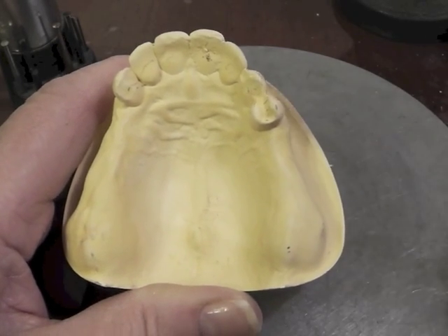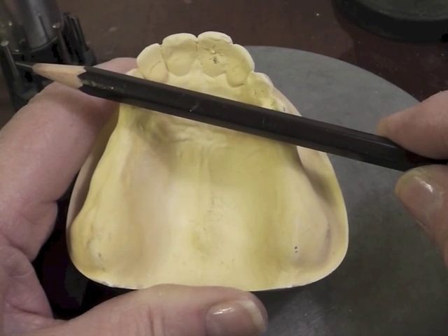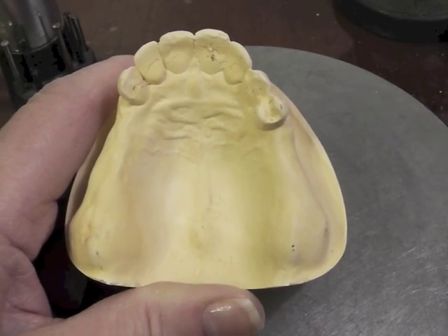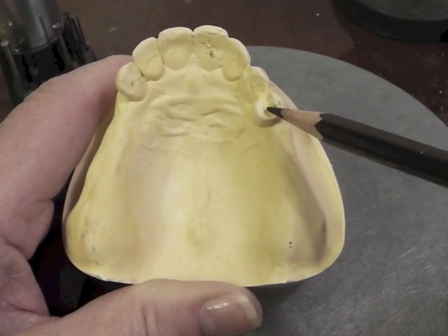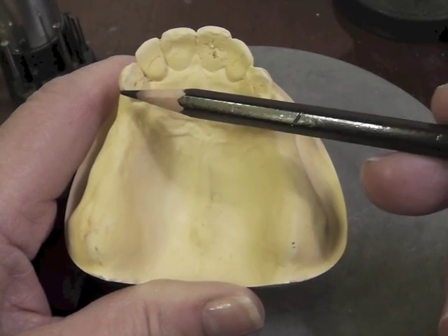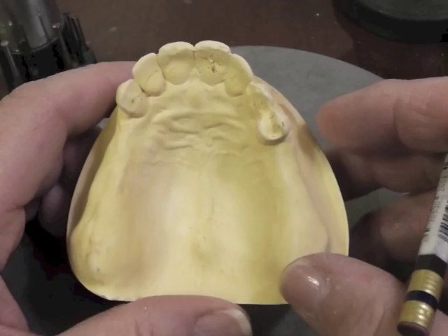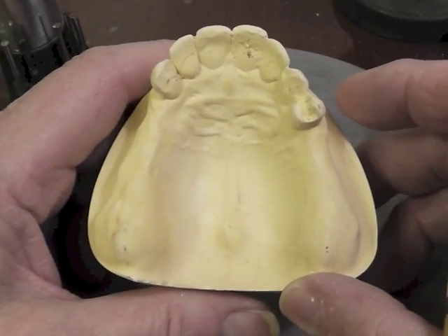With our Kennedy Class 1, we have a fulcrum line that comes across like this. On the Kennedy Class 1 we are going to clasp the two teeth that are next to the edentulous areas, so we will be doing a canine on one side and a first premolar on the other side. There will usually be only two clasps on the Kennedy Class 1.